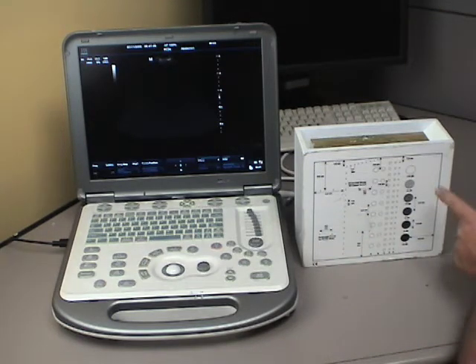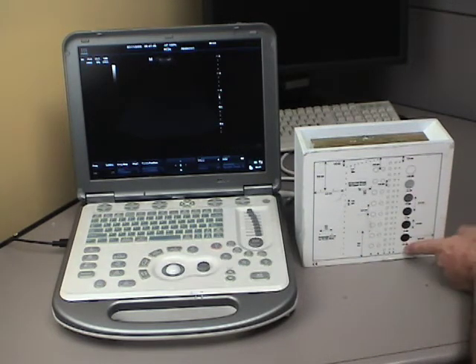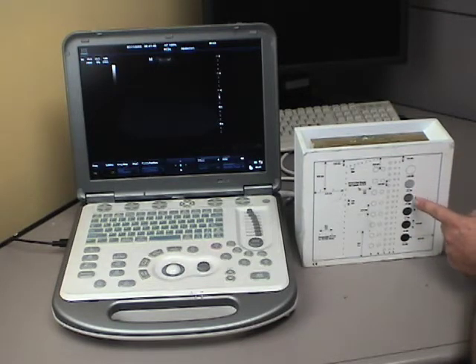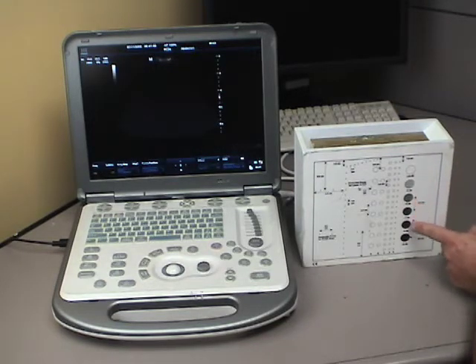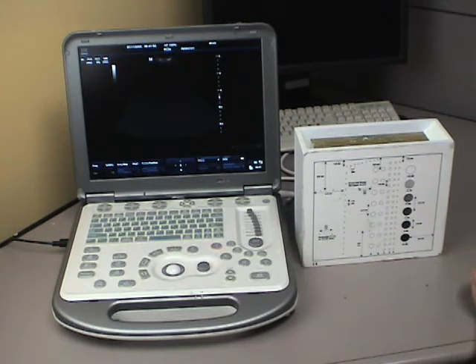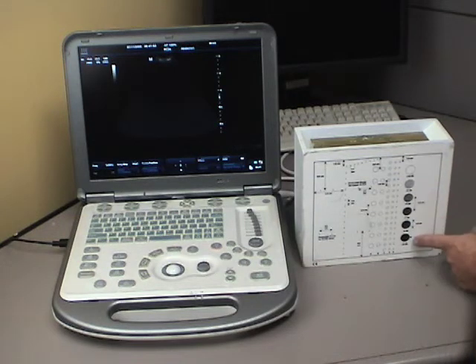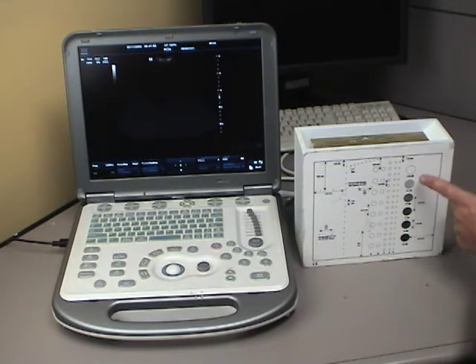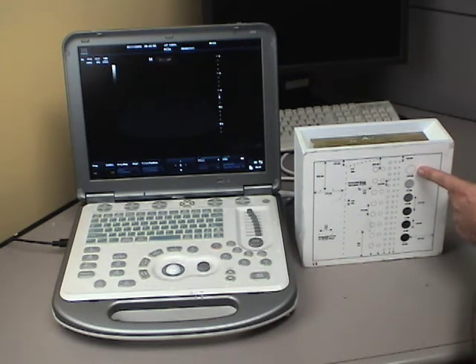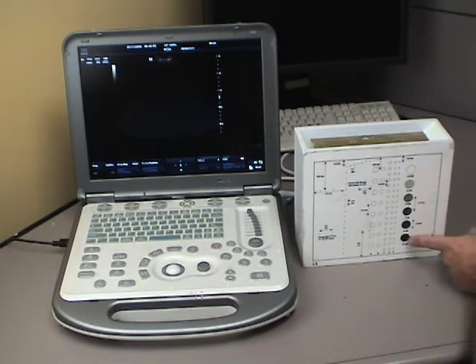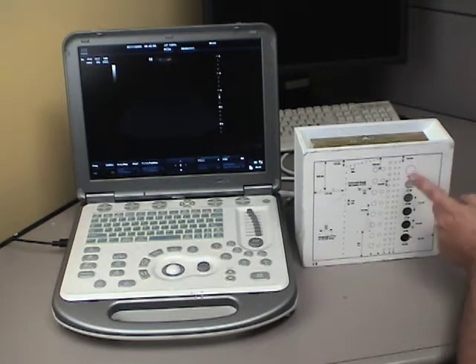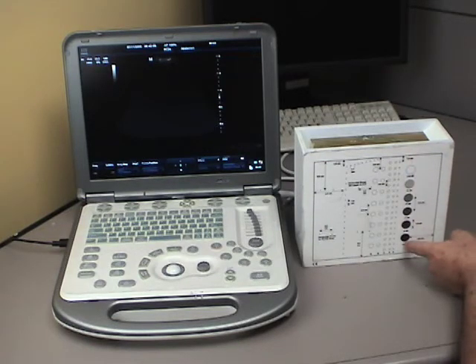Contrast resolution is what you can see right over here. It wants to find out how well you can see changes in density, not just a change of a size of an object. There's only six steps across here, but you can actually watch it go from being able to transmit all the echoes through it, it'll be perfectly clear, to passing the echoes and not being able to see those on the bottom. And you want to be able to see that you've got nice gradation through here.